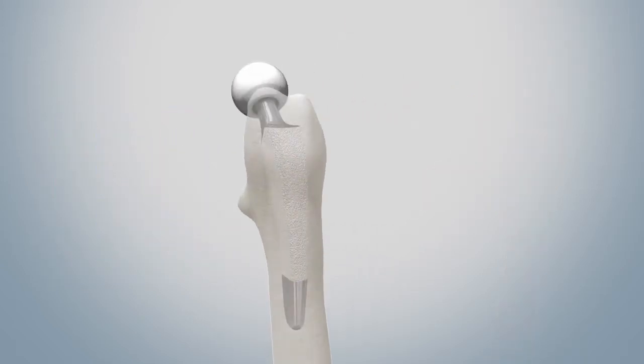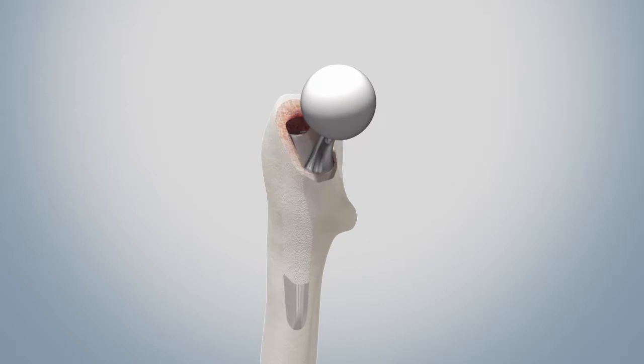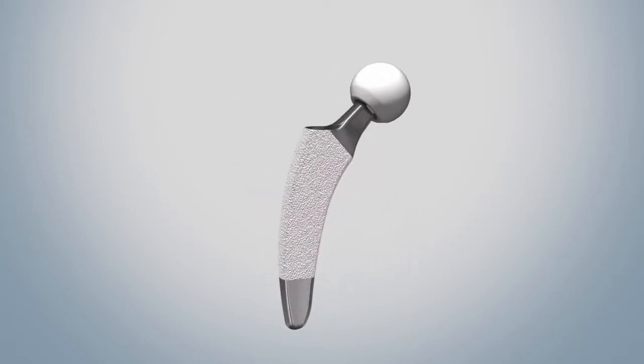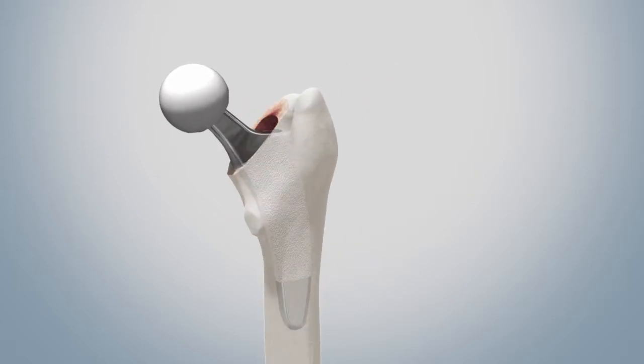This is particularly important in terms of a long service life of the implants. The process of the integration of the implant into the bone is illustrated below.